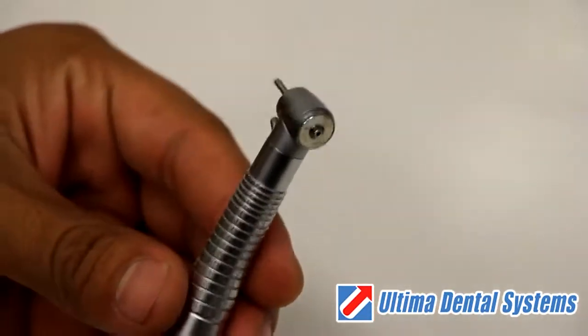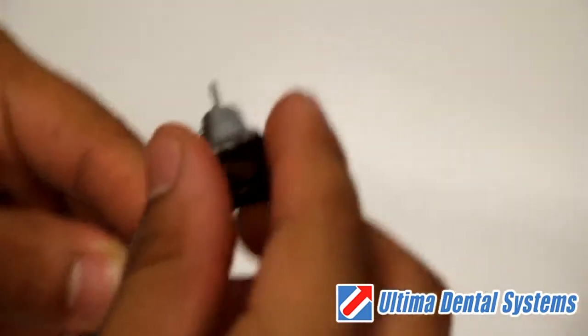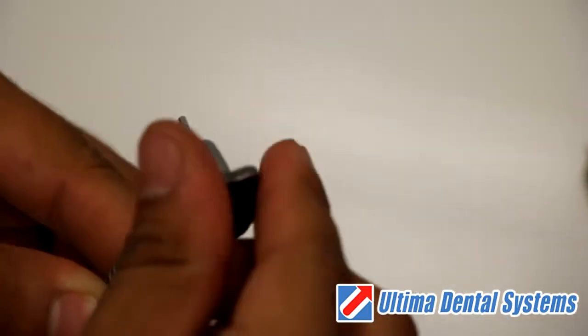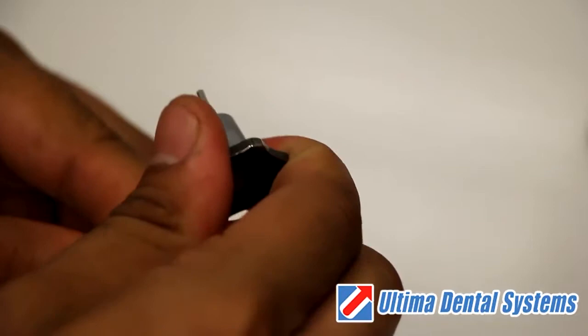Once the turbine is flush with the head of the handpiece, you can begin using your start tool to carefully reattach the drill end cap.